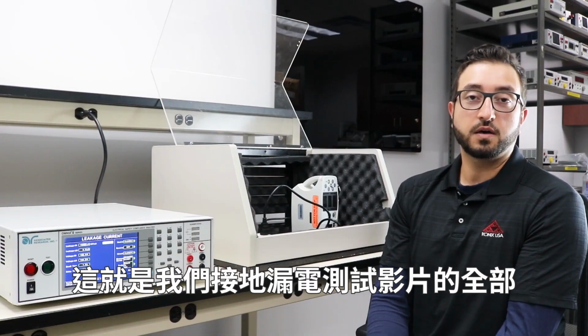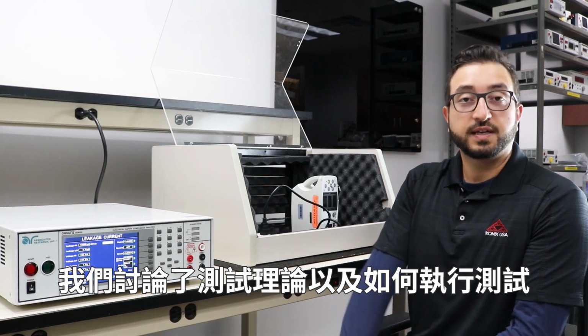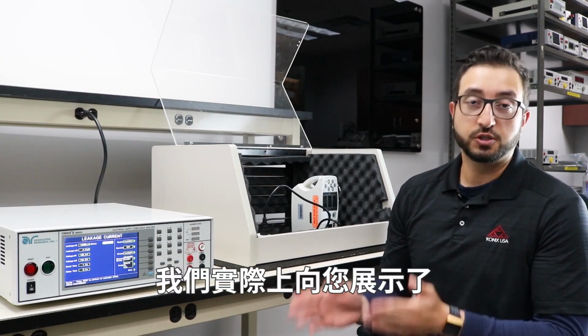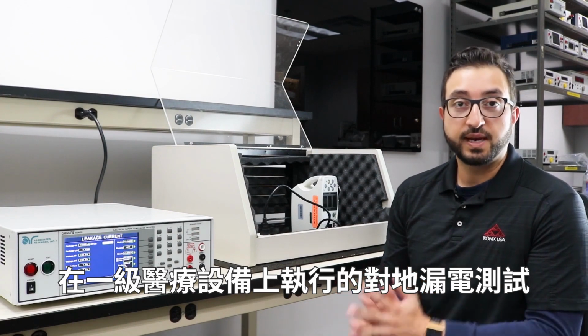So that's it for our earth leakage test video. In part 1, we talked about the test theory and how the test is performed. And in the second part, we talked about how the test is run, and we actually showed you an earth leakage test being performed on a Class 1 medical device.